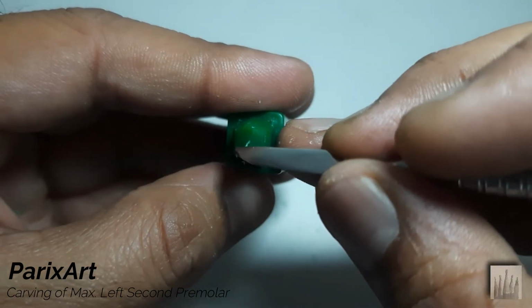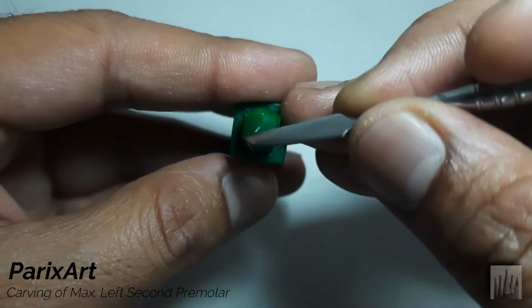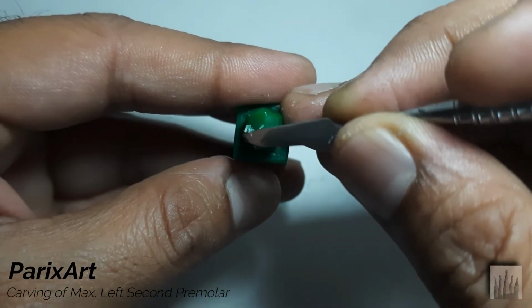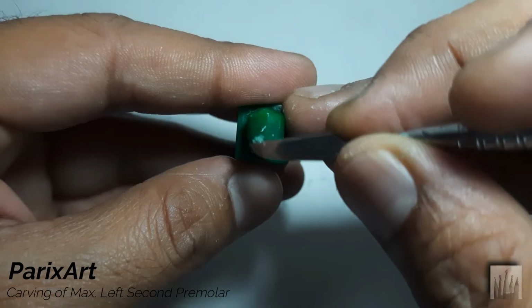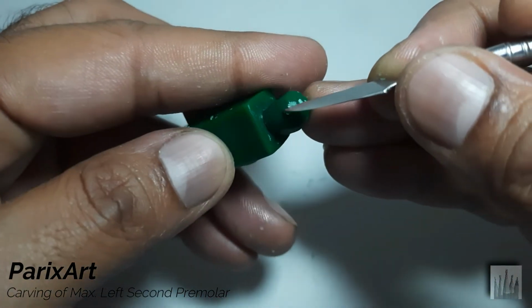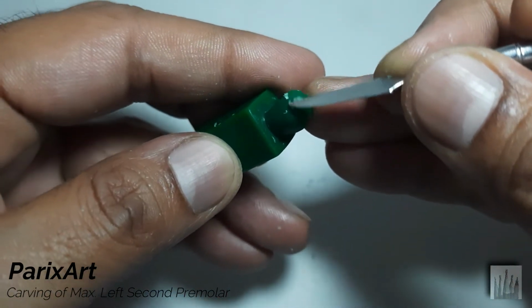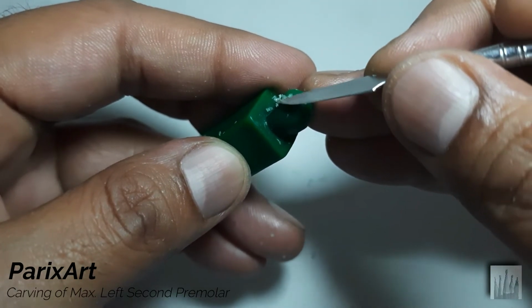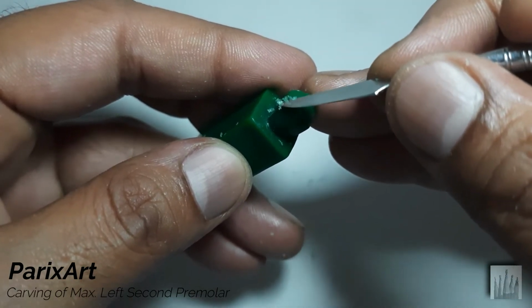This lingual cusp ridge should be in a semicircular shape. Observe the angle of the carver and also the placement of the carver, which is carving only in the occlusal third.